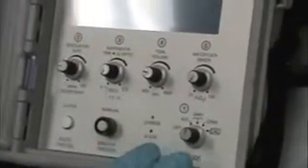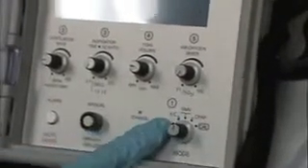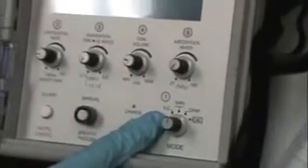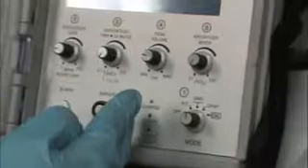This is a more comfortable mode for a patient that is more awake and alert and allows them to regulate their carbon dioxide level on their own accord without us blowing off all their CO2. If we put the same patient in the AC mode and they were not well sedated and they triggered 20 breaths, then they're going to blow off all their carbon dioxide because they're going to get 500 cc tidal volumes every time they breathe. In SIMV mode, they're going to get mandatory breaths and non-mandatory breaths, and the non-mandatory breath will be at their own leisure, their own volume.